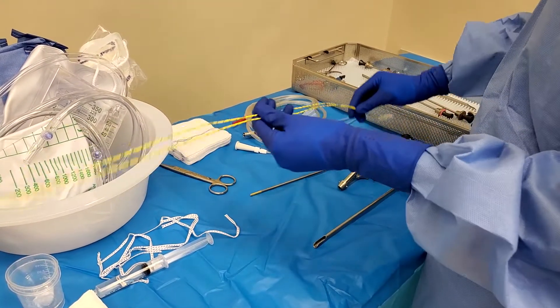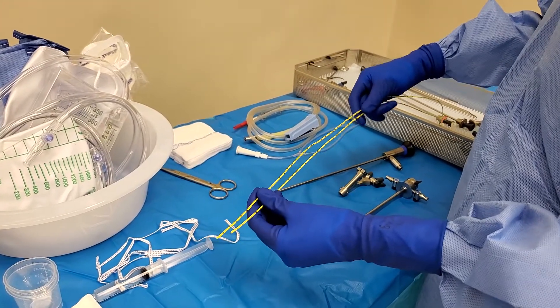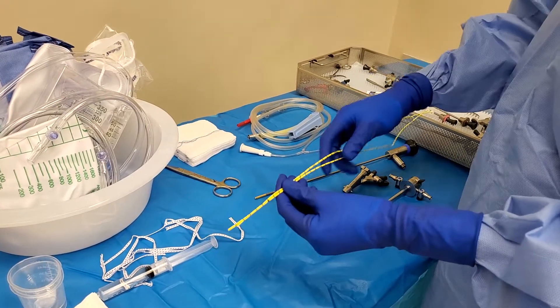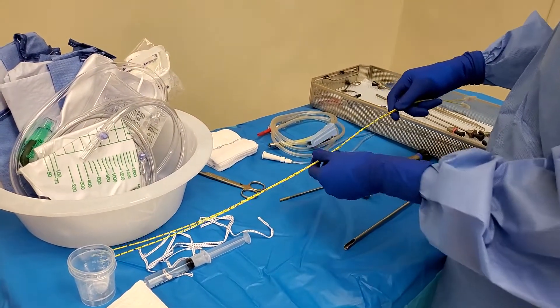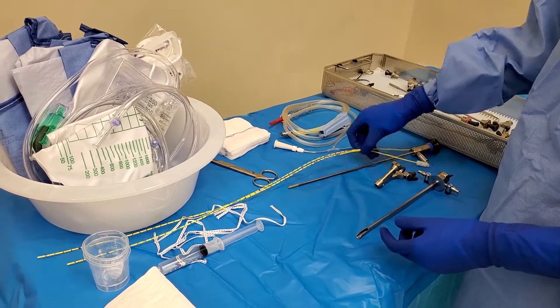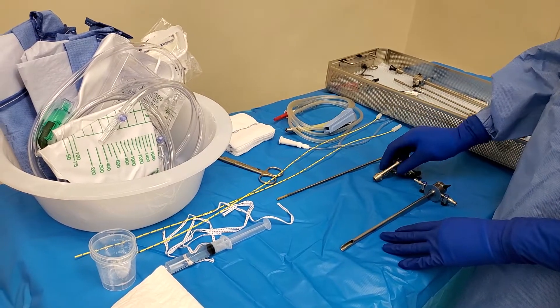There are two types of stents. These are not the lighted ones — these are just the yellow ones. They don't glow in the dark or anything, but there are ones that glow inside the belly so that it's easier to see. But the surgeon is pretty good so he can actually pinpoint exactly where they are just by touching it, and you can really feel it inside the belly during laparoscopic cases. This is just a basic setup for a stent.